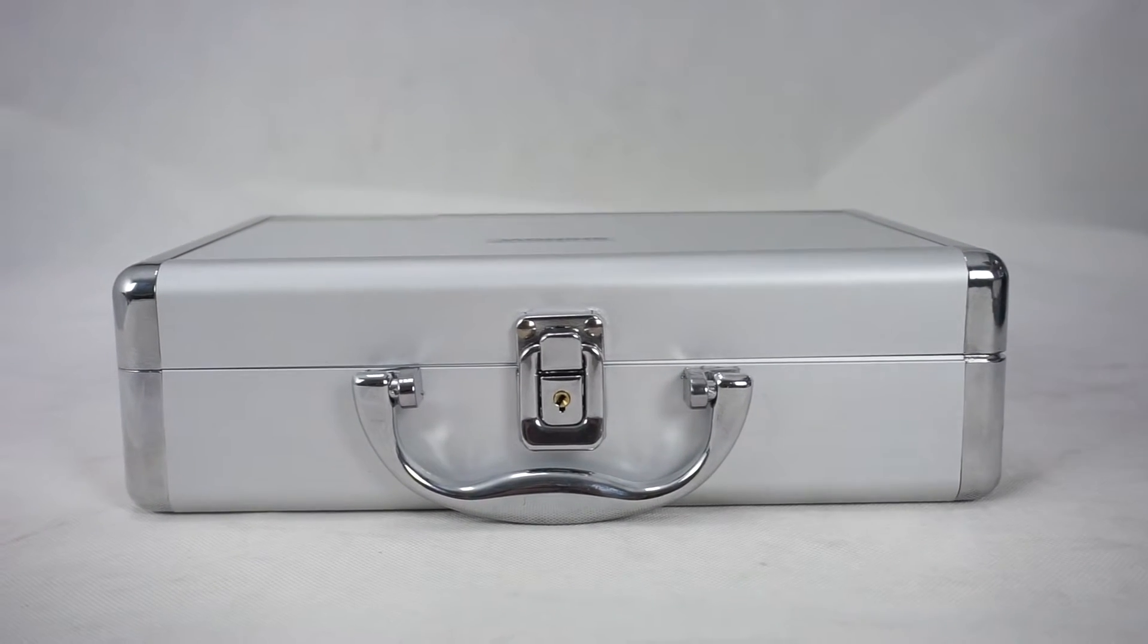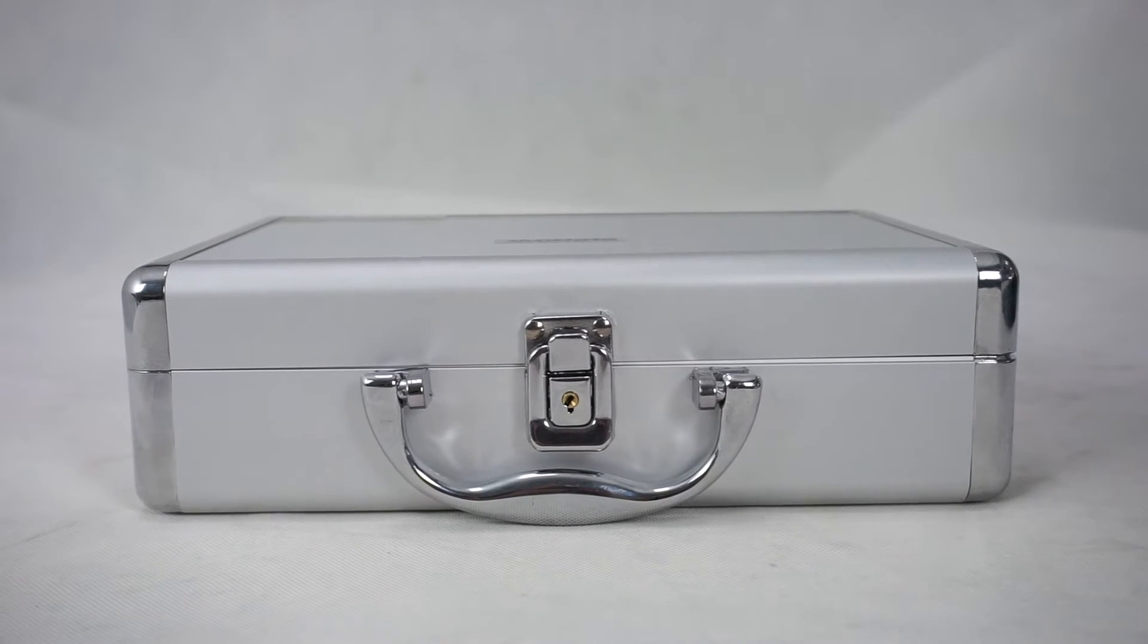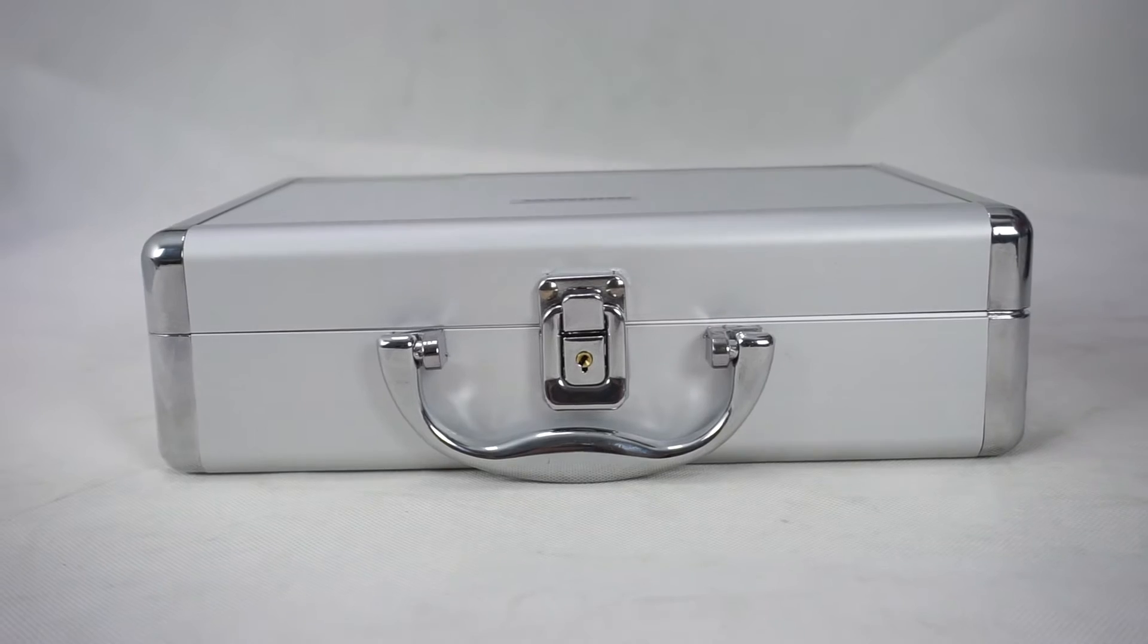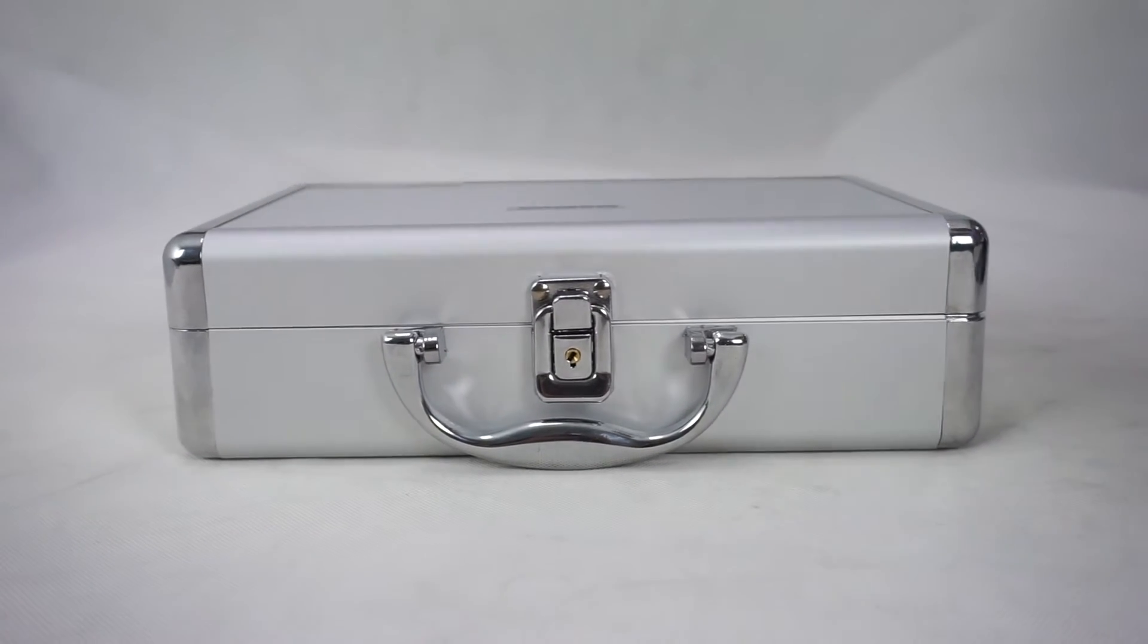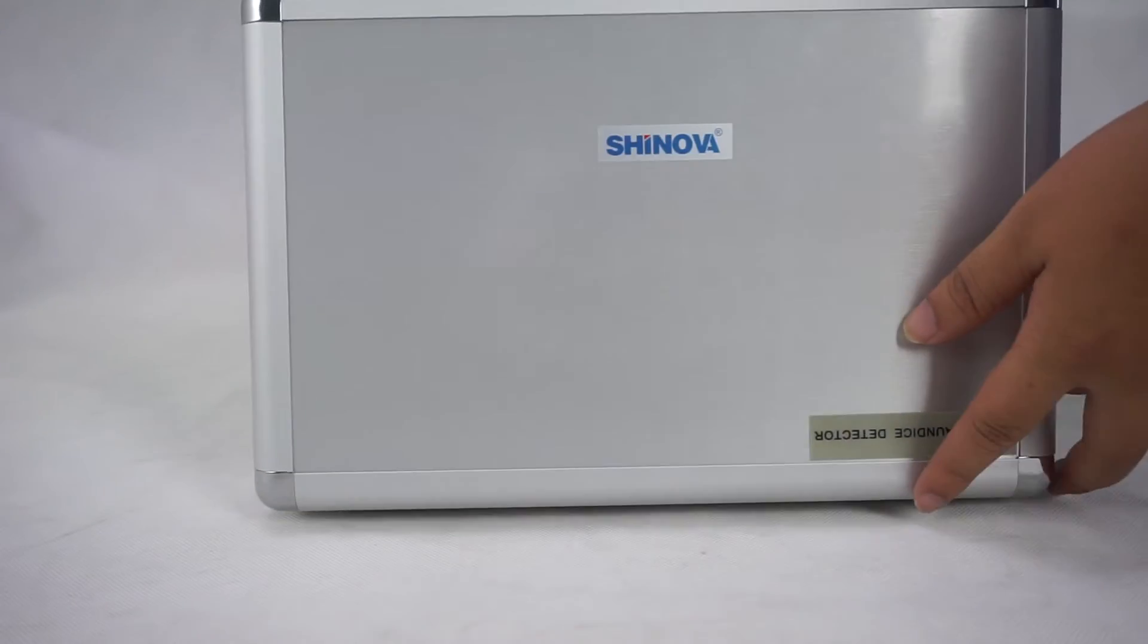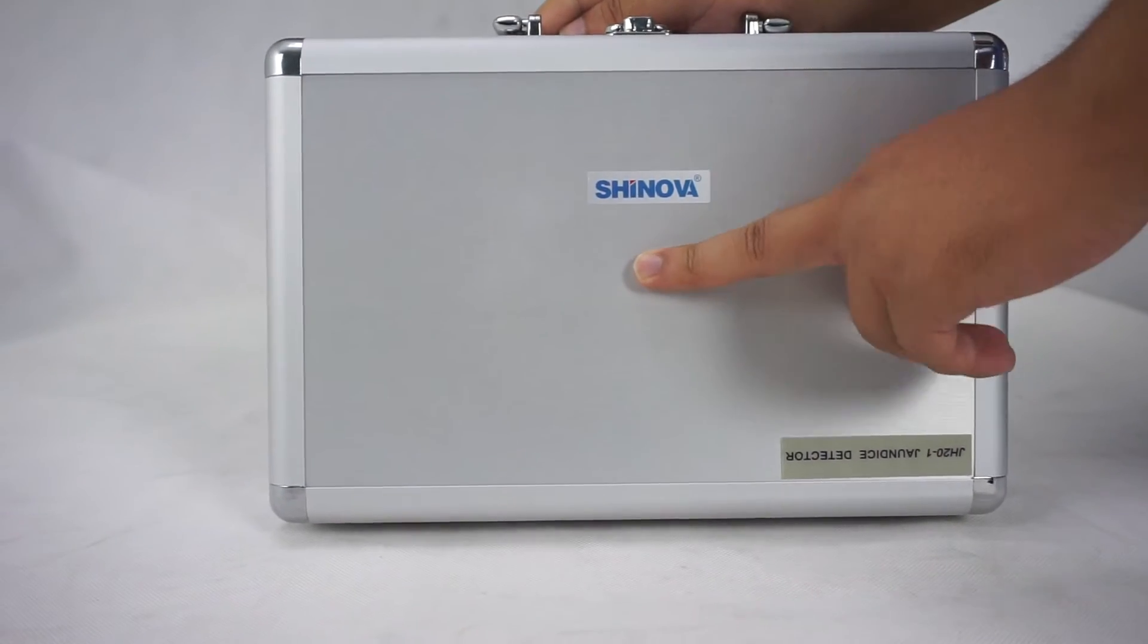First, you can see our package. We use the metal case to pack the machine, and you can also see our trademark on the package.